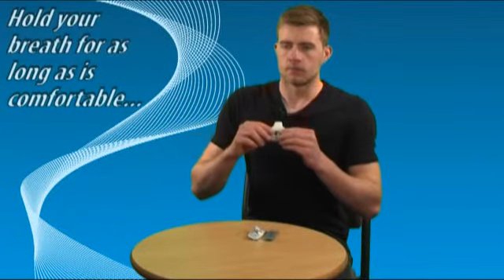Hold your breath for as long as it is comfortable. Remove the inhaler from your mouth and breathe out normally.